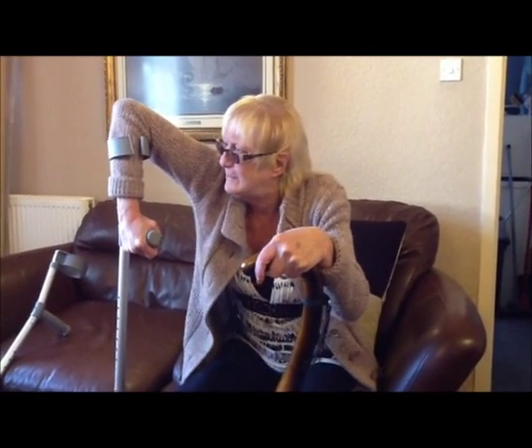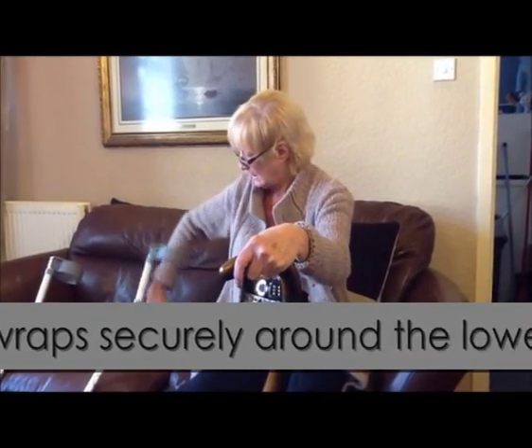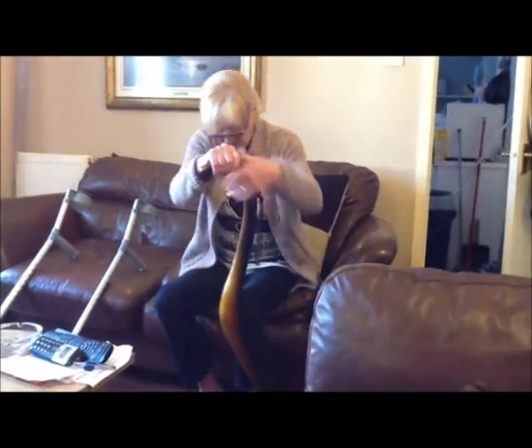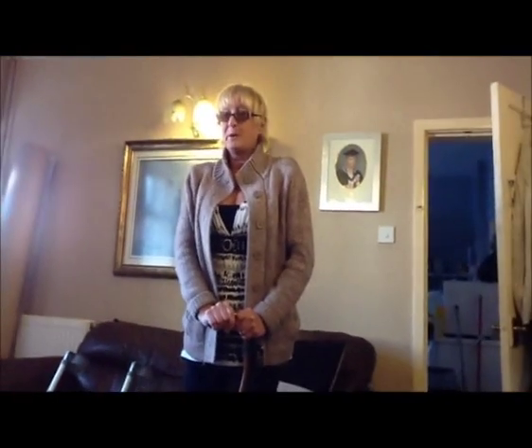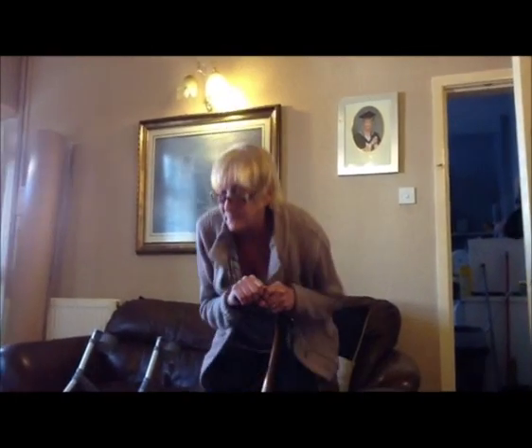It's really very tight on my shoulder if I try to push myself up, but what I've found with the flow is: get myself into the right position, position it properly, and your arms are in a better position — and then up. No problem at all. No strain on my arms or my shoulders. Simple.